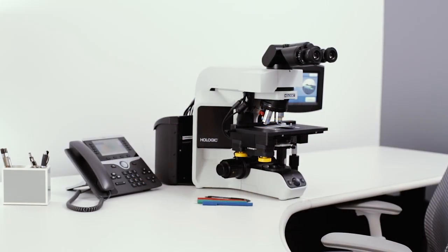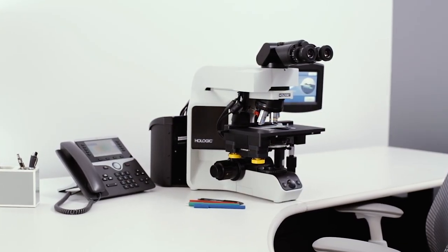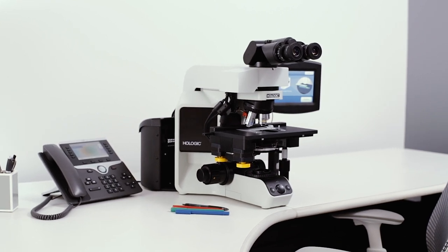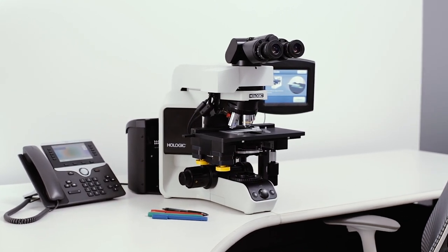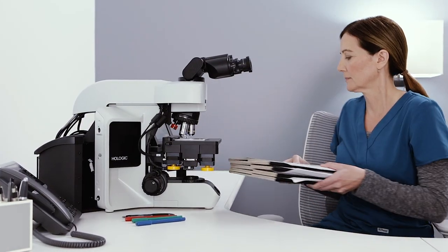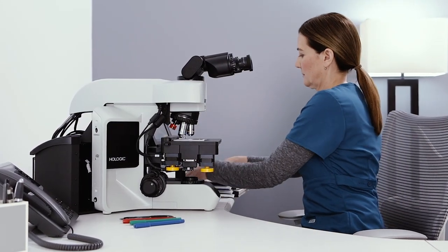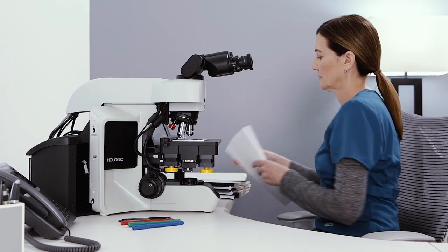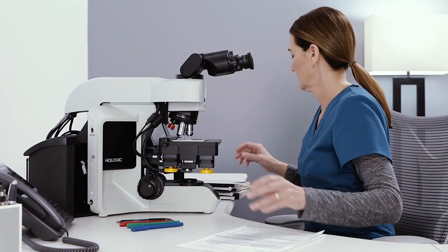The ThinPrep Integrated Imager combines the power of ThinPrep imaging and the ease of guided slide review into a single automated microscope. The ThinPrep Integrated Imager brings ThinPrep imaging technology within reach of all laboratories, bringing cervical health screening to a new level of excellence.